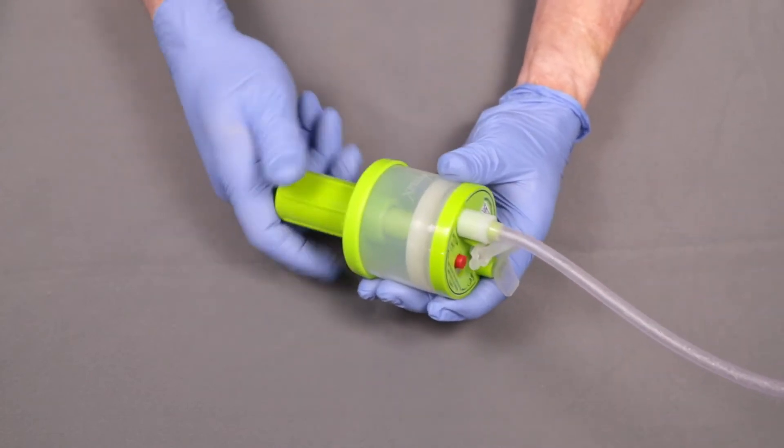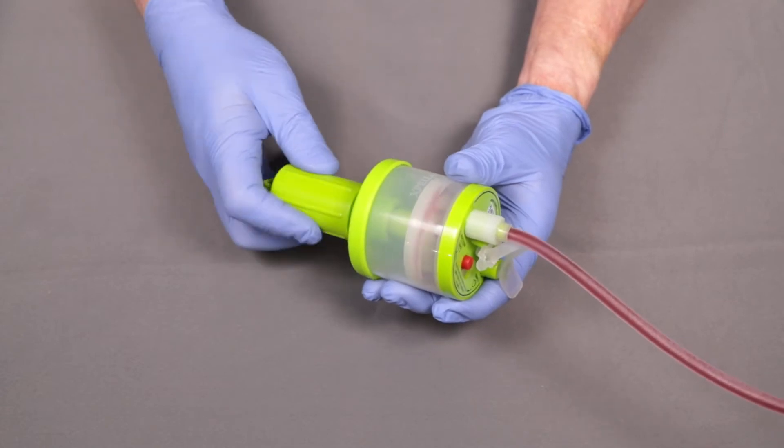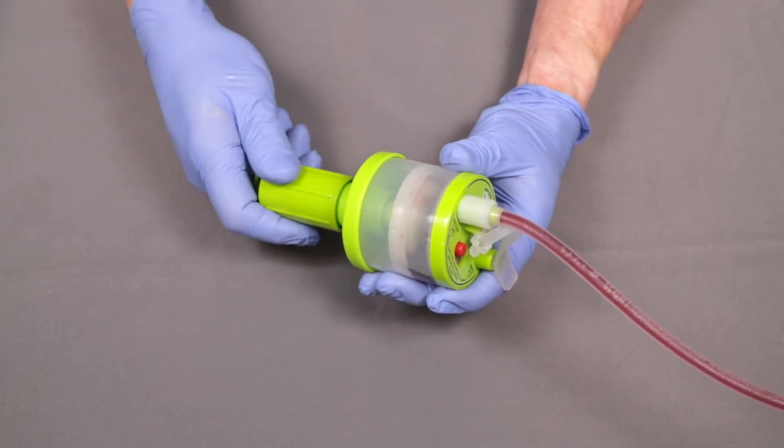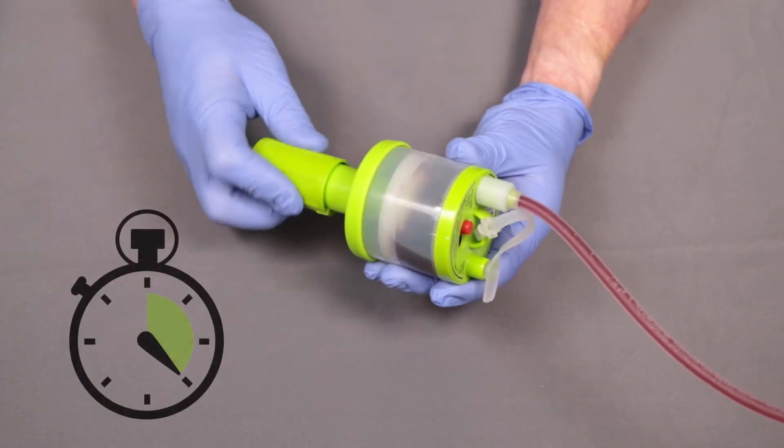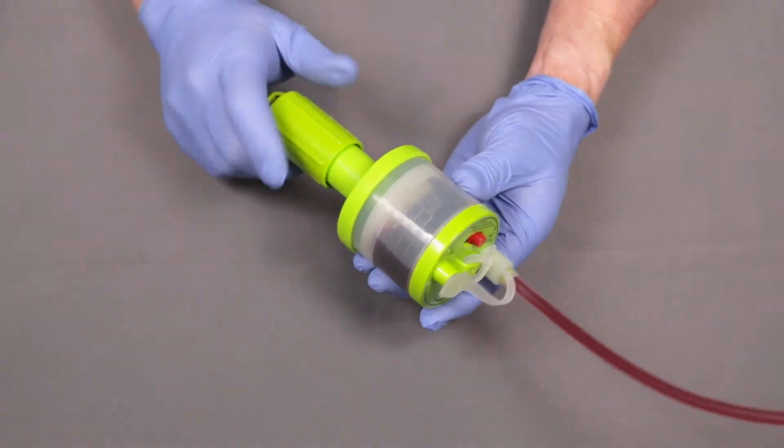Turn the handle away from the reservoir until it stops. The reservoir will start to fill with the exudate. It may take up to 4 hours to fill depending on the amount of exudate.